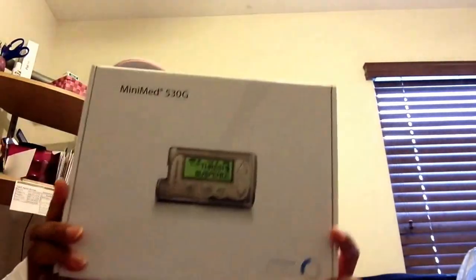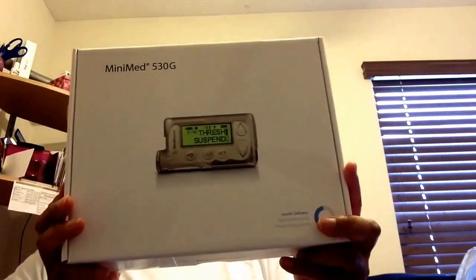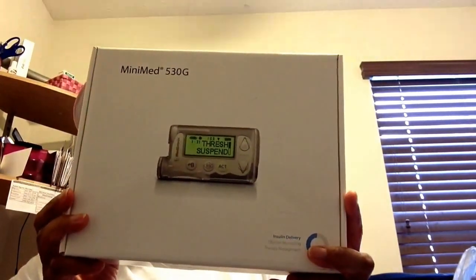One of the items that came in the box is my Medtronic MiniMed 530G — the one that holds a 300 reservoir. Even though I was a previous Omnipod person, I've been having some issues with insulin expelling faster than it should because of settings not being right and pods messing up quite often. It's still a good pump, don't get me wrong — it's just not for me anymore.